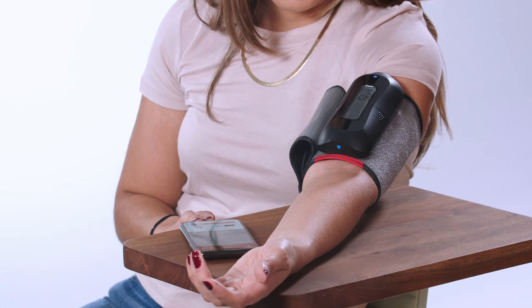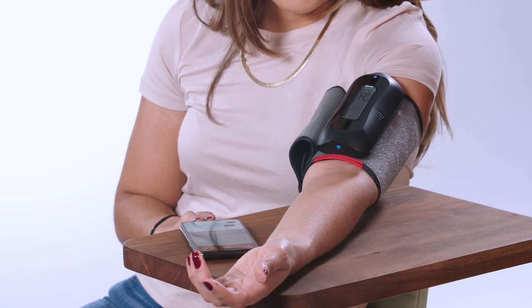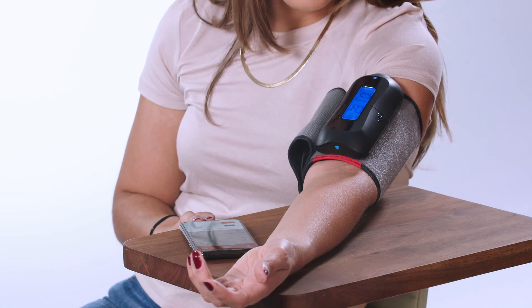While you will only see the last reading in the app, your whole body digital twin records all your readings, which your twin care team will monitor.